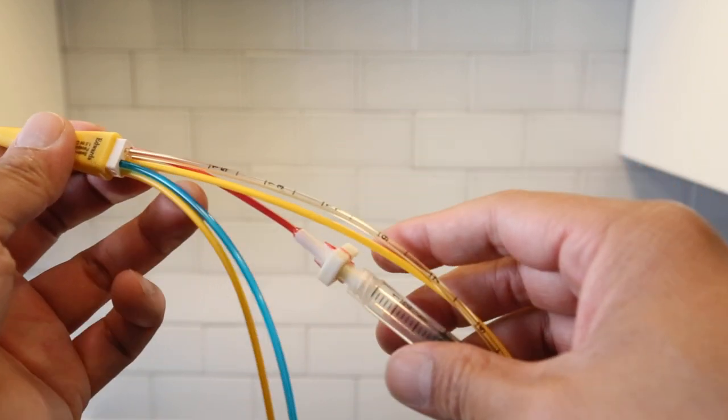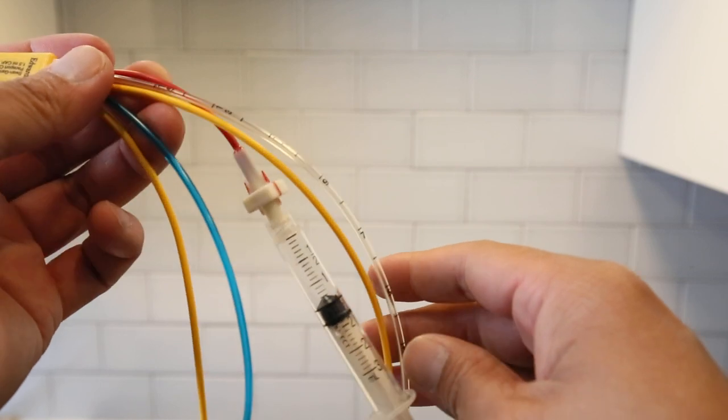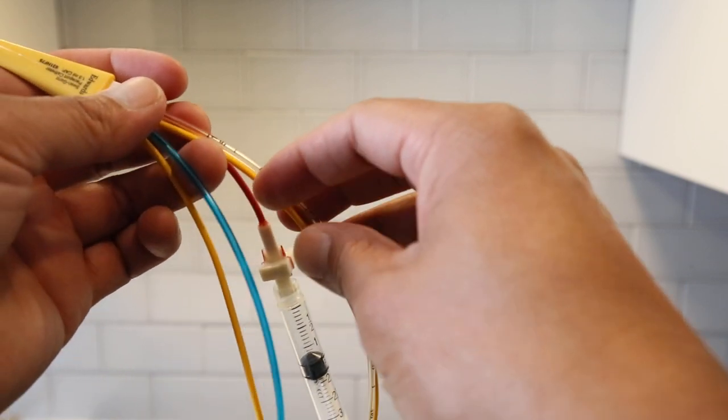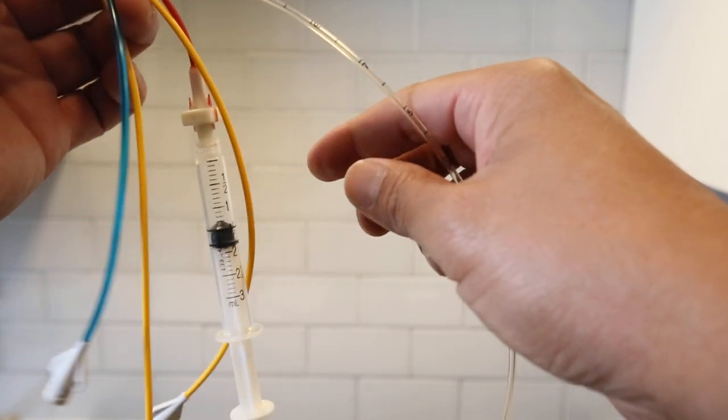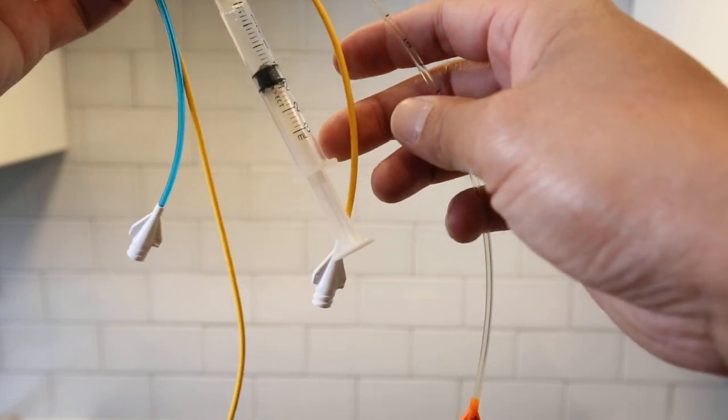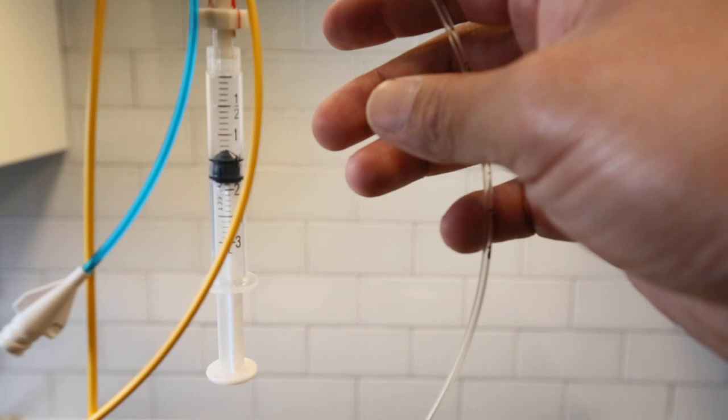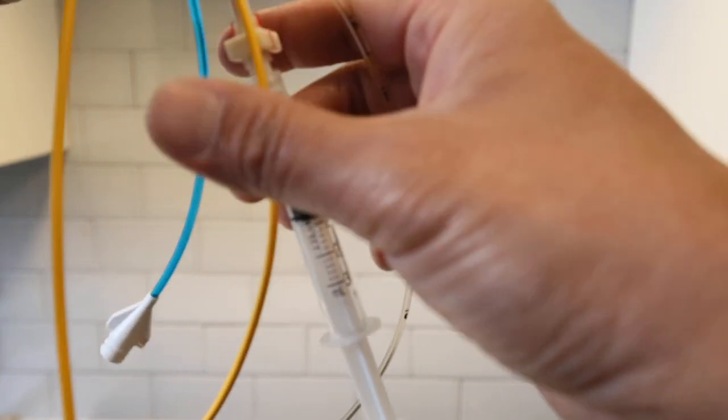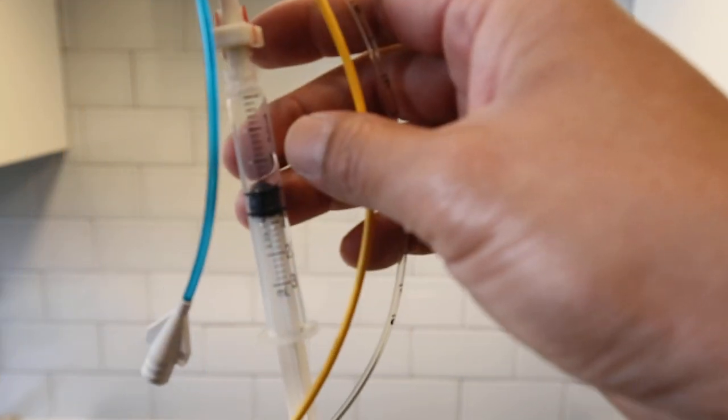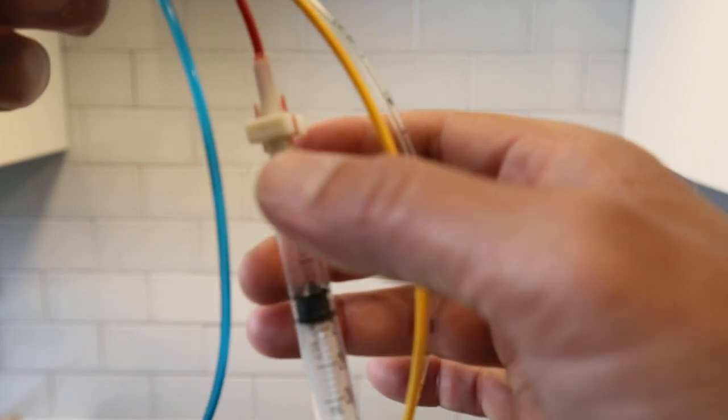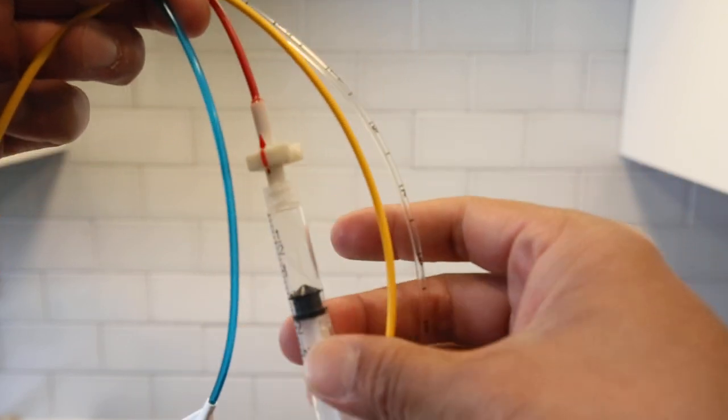So proximal, which was the closest hole, is going to be, then injectable hub, this one. So this proximal hub.